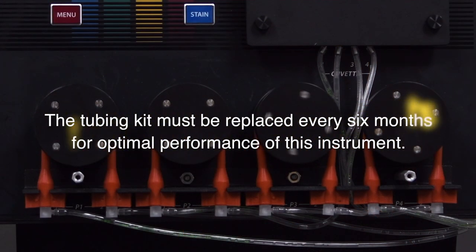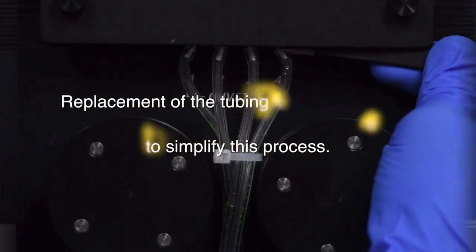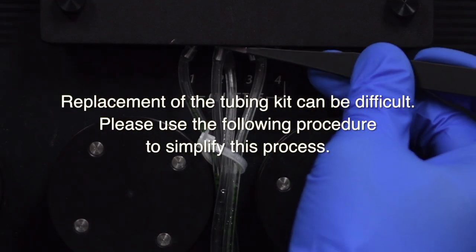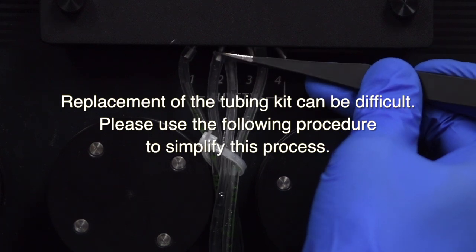The tubing kit must be replaced every six months for optimal performance of this instrument. Replacement of the tubing kit can be difficult. Please use the following procedure to simplify this process.